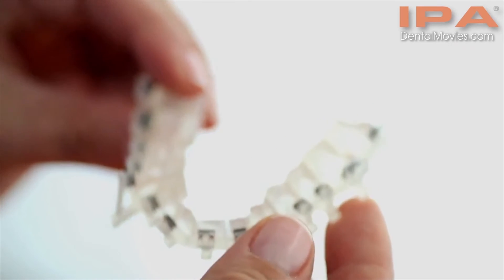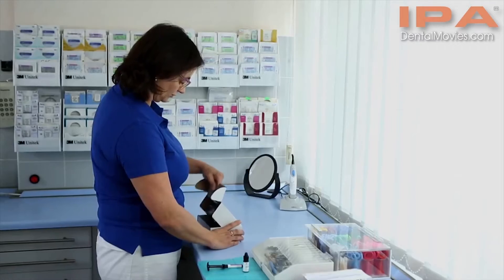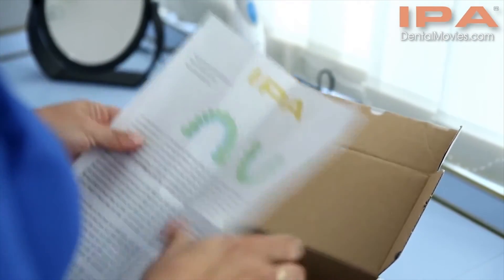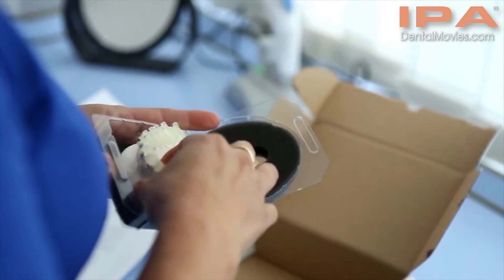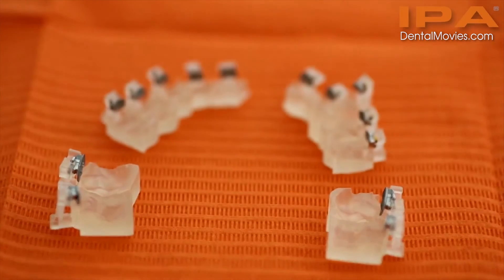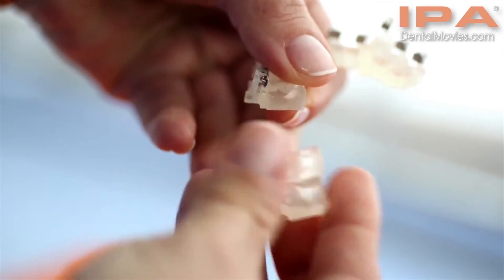Based on the model sent to the laboratory, an individual patient kit is prepared which includes printed jigs for indirect bonding with embedded brackets and a specification. The IPA kit includes jigs for indirect bonding. The jigs with brackets are delivered on stone models which allows the dentist to control the final bracket positions. After having checked the final position of the brackets, the dentist can start the bonding procedure. The positioning jigs can be segmented according to the dentist's preferences by breaking them gently in selected places. The jigs have special indents that facilitate the segmentation process.